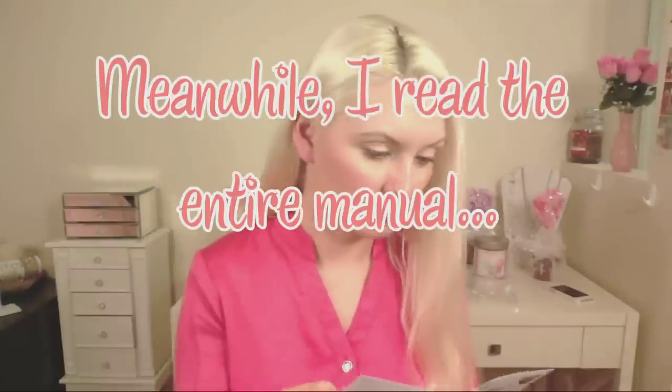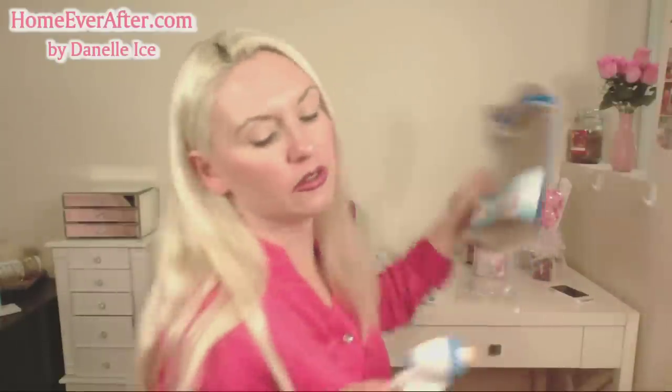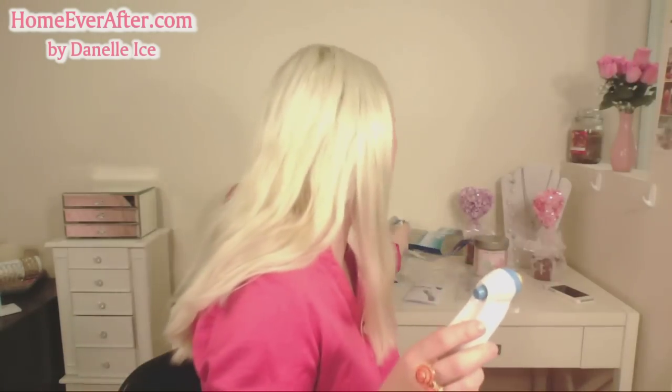Still 99, but it's gray. Now we have to bust out the manual — this is starting to make me upset. The fever insight says green is okay, yellow is mild, and red is high. Why can't we make ours do this? Let's try it again — maybe mine is defective. It finally lit up green, only for a second though. So I'm not that happy about that. It might look better in the dark — let's turn out the lights and see.